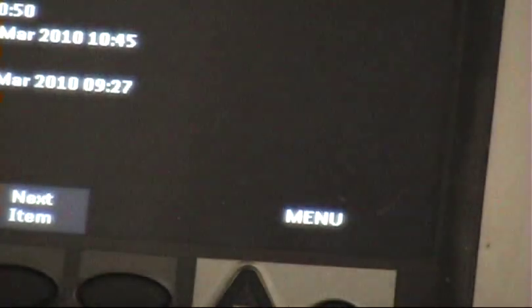Transmission passed. Acknowledge, then exit and turn it off. That's all there is to it.